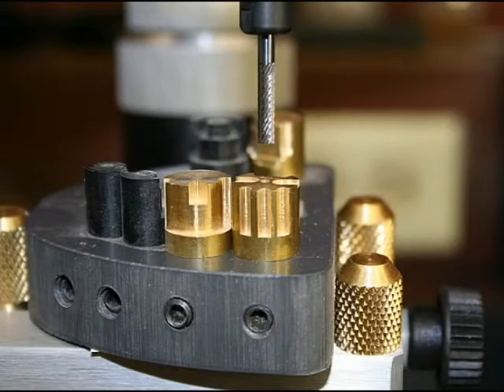The practice pin to the left has the equivalent of a lingual shelf and an occlusal rest. The pin to the right has three vertical flutes and two occlusal rests. These are just examples of plunge cutting and milling with the end of the milling burr.